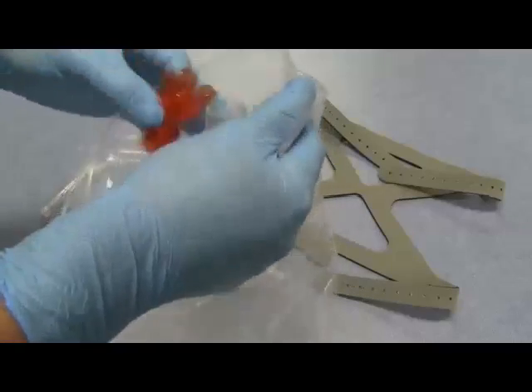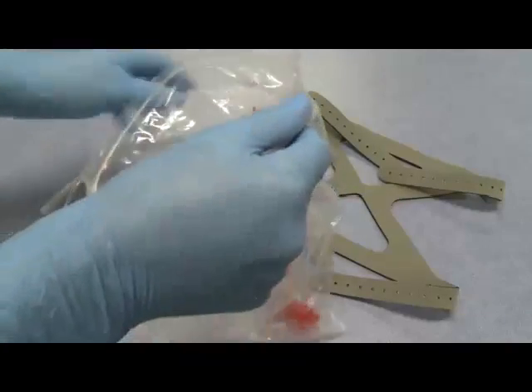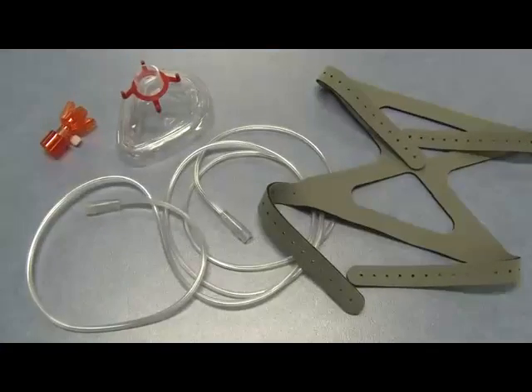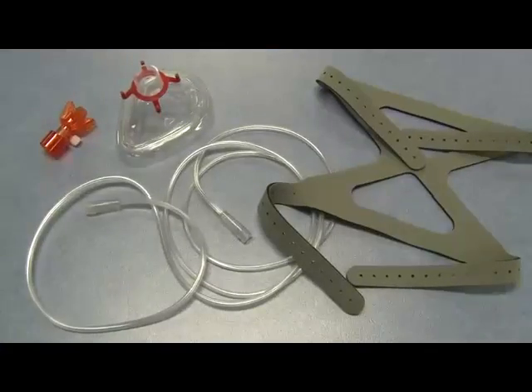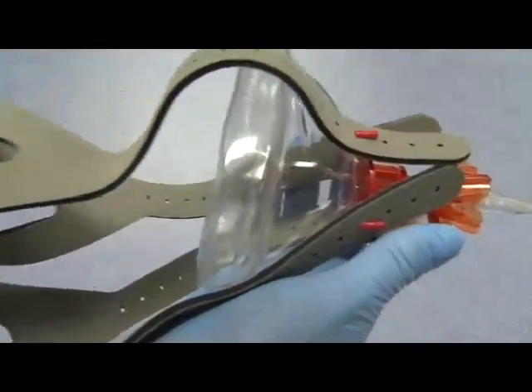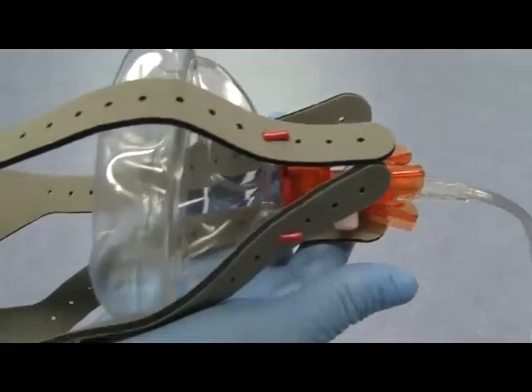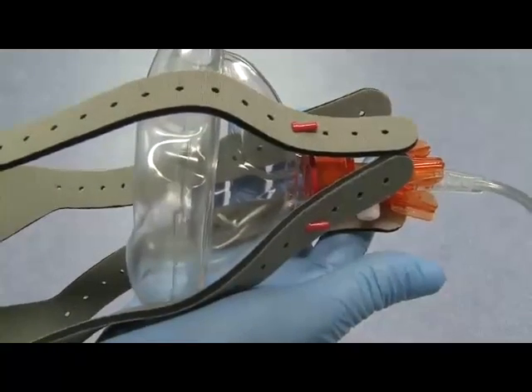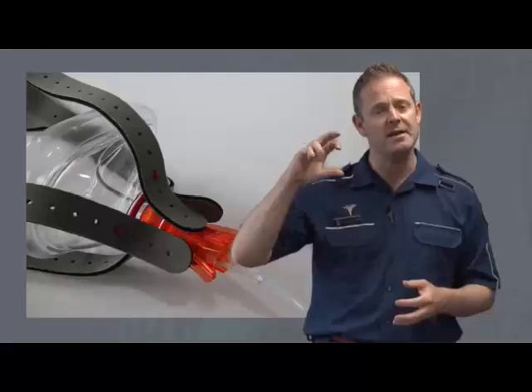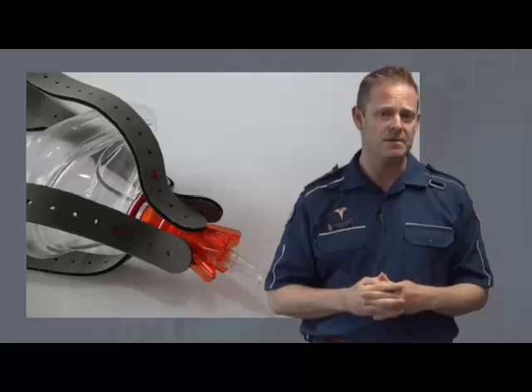It is single use only, therefore fully disposable. It has a minimal number of parts, therefore it's quick and easy to assemble. It uses standard pieces of equipment with no need for manometers and additional flow meters. Because we only use a current 15-litre flow meter, our oxygen consumption rates are very low.